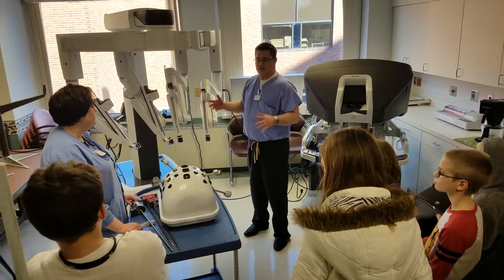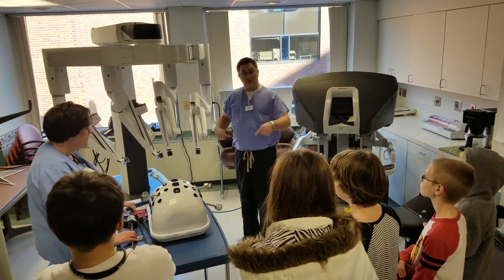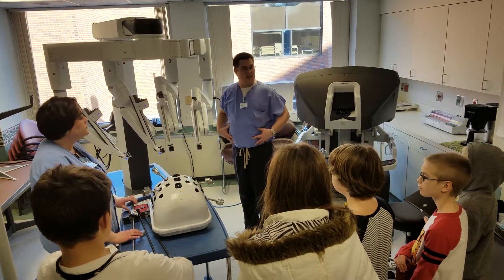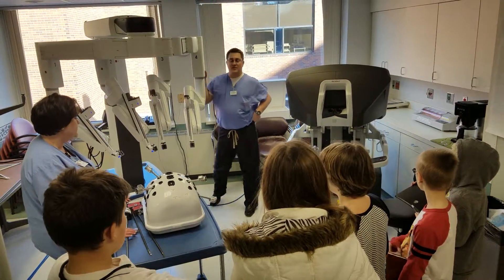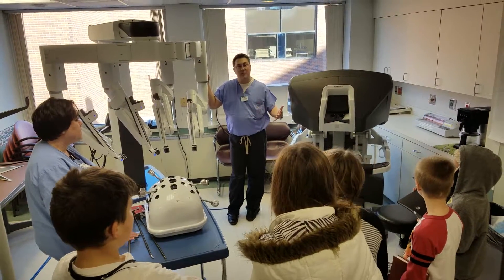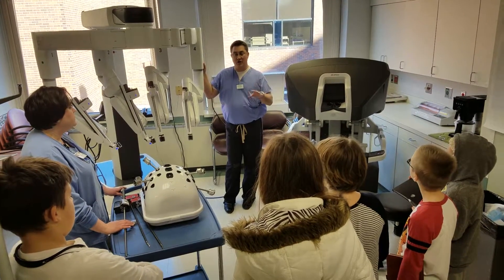The whole idea of this is, instead of having to cut someone's belly open, we're going to make little incisions to put instruments in so patients can heal faster and go home. So a lot of it is precision of the procedure as well as healing time? That's right. Trying to do more minimally invasive surgery, which is just better for patients — instead of big incisions where you have to open bellies — and doing it more precisely.